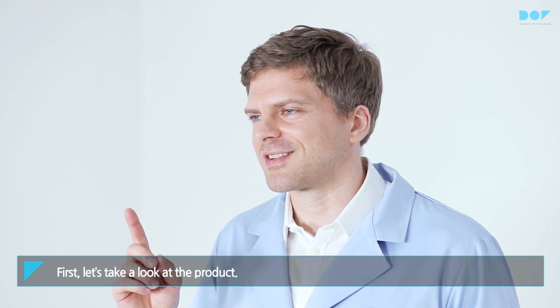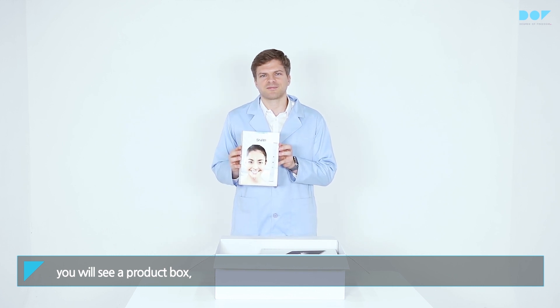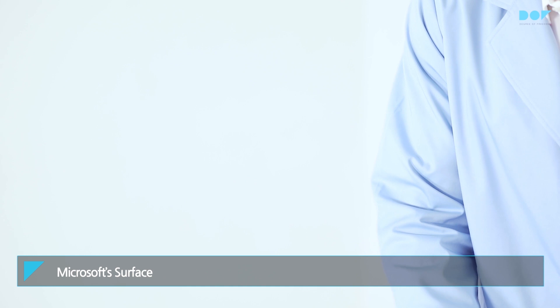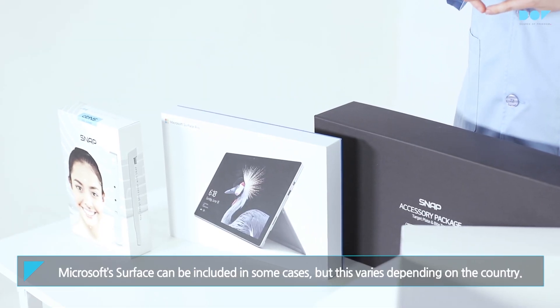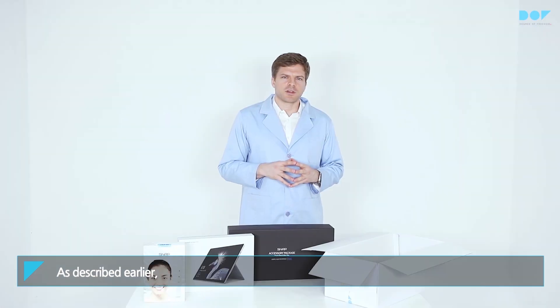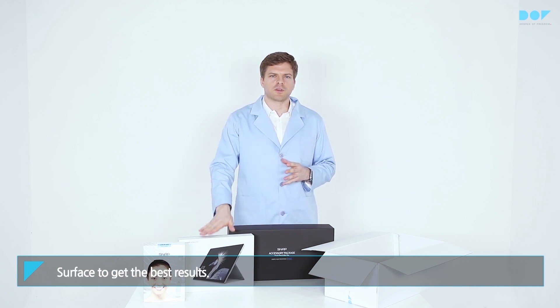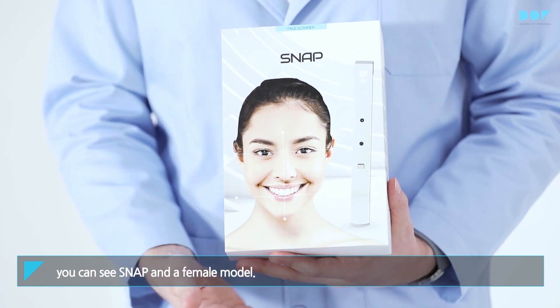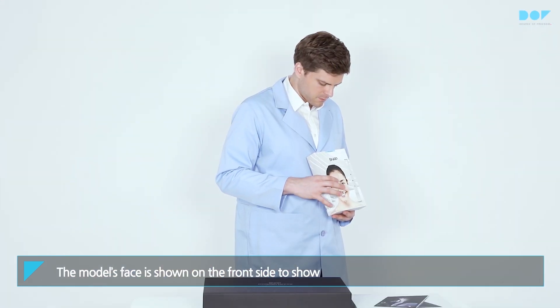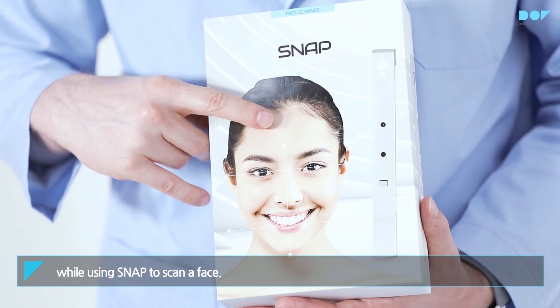First, let's take a look at the product. When you first receive the product, you will see a product box, a Microsoft Surface, and an accessory box. The Microsoft Surface depends on which country you live in. Since Snap is a product that needs to be connected to a tablet PC, it is recommended that you use the latest version of Surface to get the best results. If you look at the front side of the product box, you can see Snap and a female model. The model's face is shown on the front side to demonstrate that it is possible to design a tooth model through looking at the midline displayed while using Snap to scan a face.